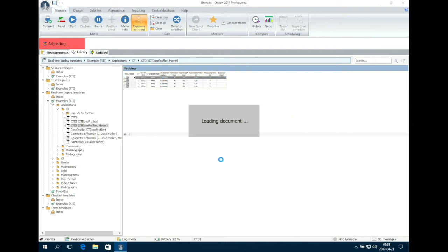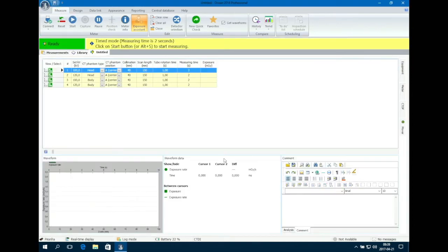Ocean will now prepare for CT DI measurement. Open the equipment tab. Choose the brand of your CT.